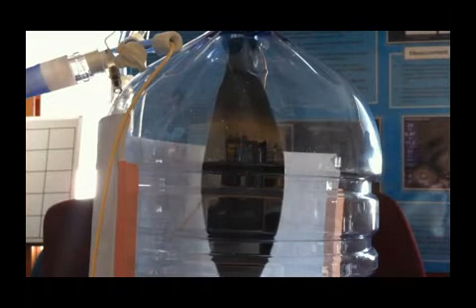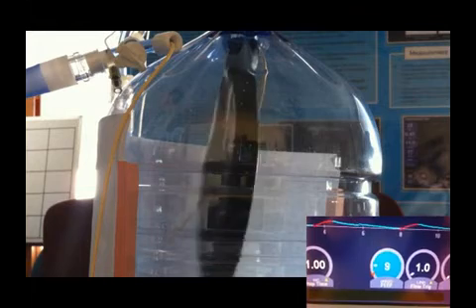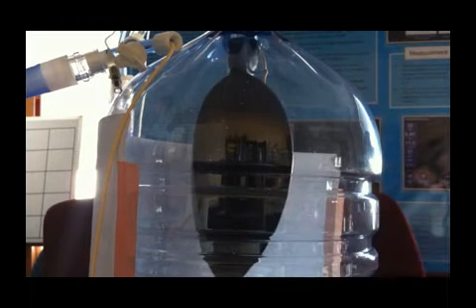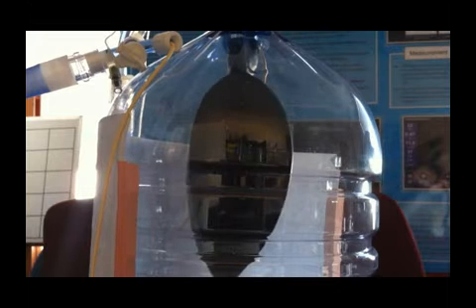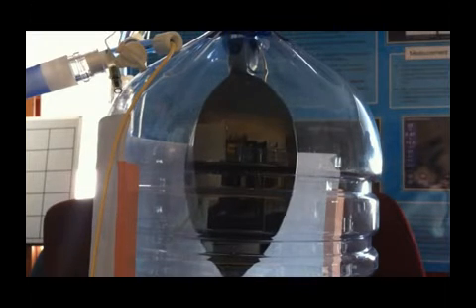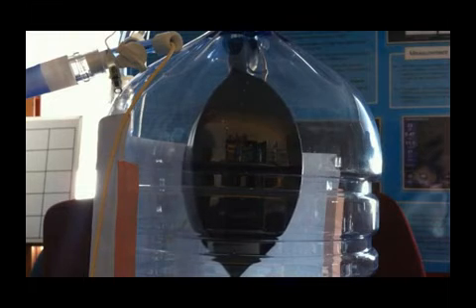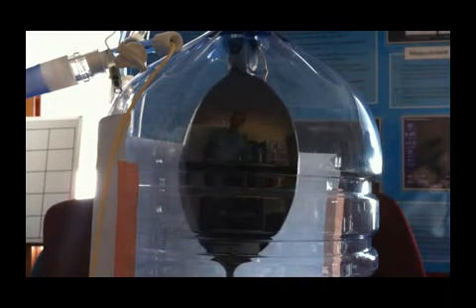To correct this collapse, I must increase my PEEP to match the pressure outside of my lung again. As you can see, now that I've increased my PEEP to 12, the lung is staying inflated at end of exhalation.